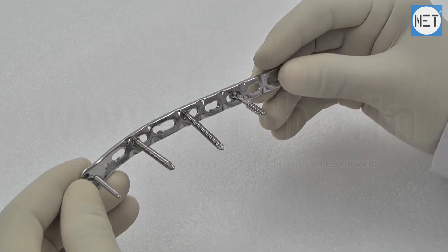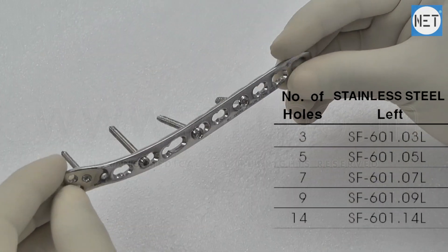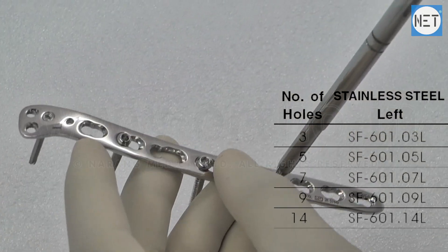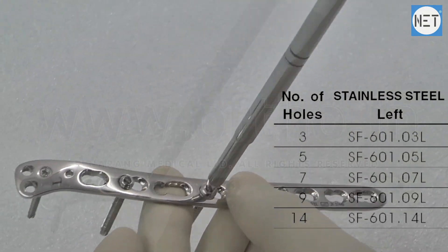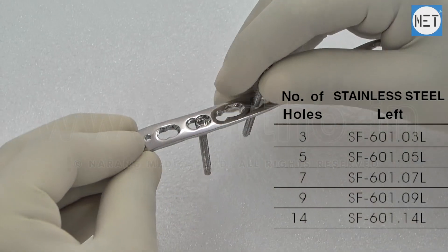These plates are available with number of holes varying from 3 to 14 and are separately designed for right and left sides. These are available in stainless steel and titanium.